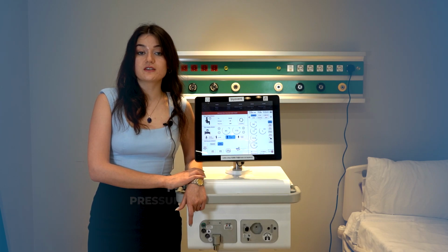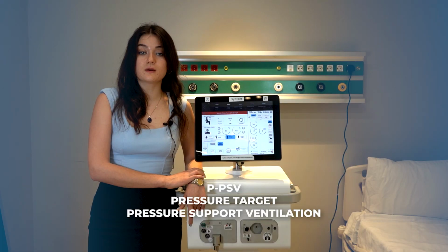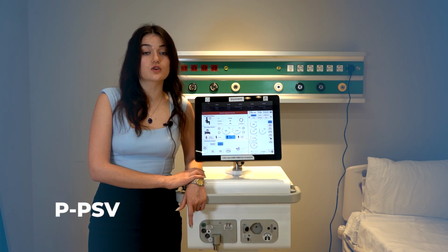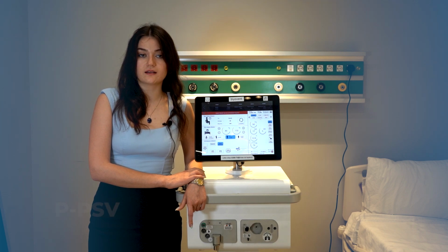Now we have Pressure Target Pressure Support Ventilation Mode. This mode refers to pressure support ventilation. Pressure support ventilation is used to support the patient's own breathing. In this mode, the device provides support at a specific pressure level, but the patient's breathing rate and volume are not controlled. It allows the patient to control their own breathing while providing a set level of pressure support. It is pressure-targeted, patient or mechanically ventilator triggered, and most importantly, it is flow cycled.